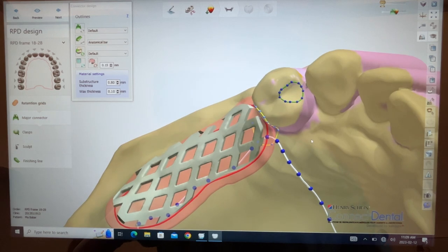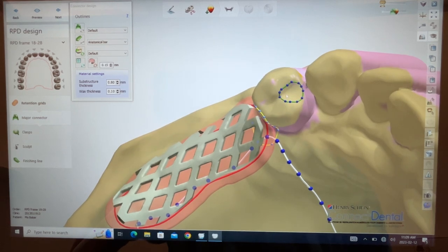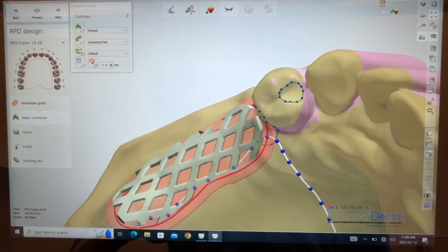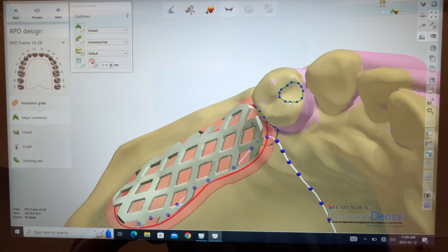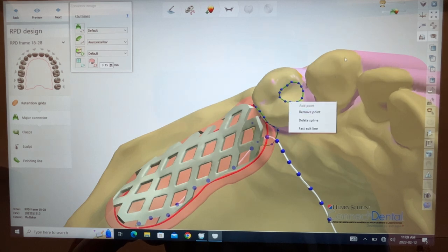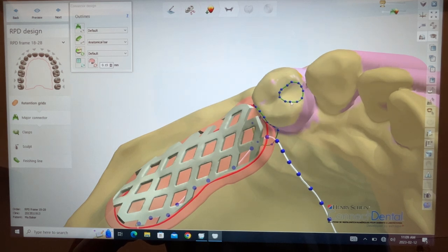Again, you can click on your design, right mouse click. You can remove point, you can delete point, you can move up and down to widen.